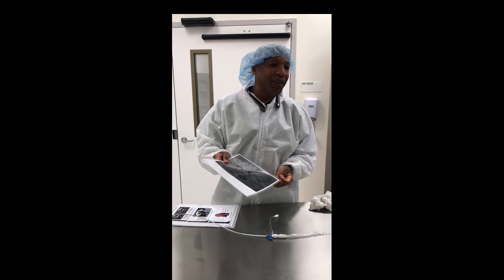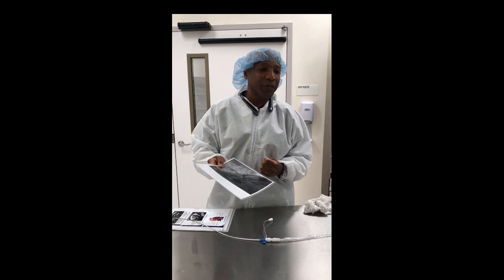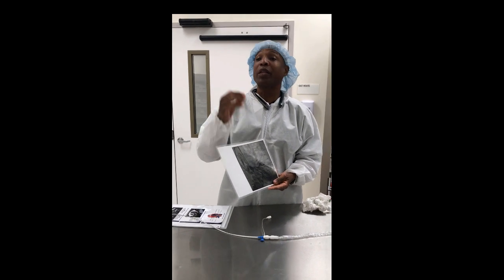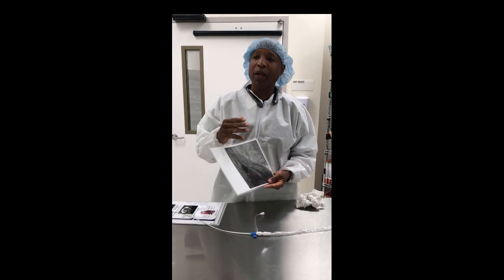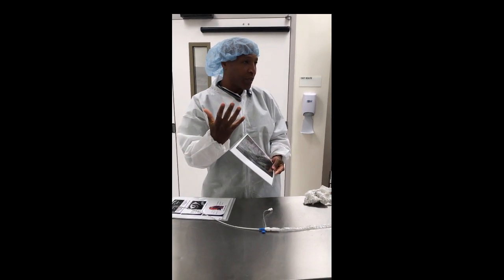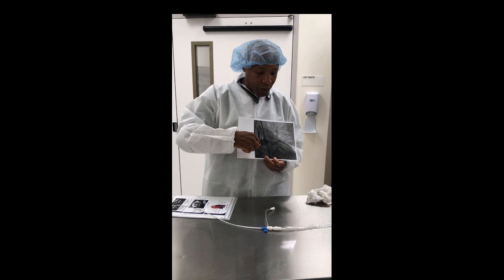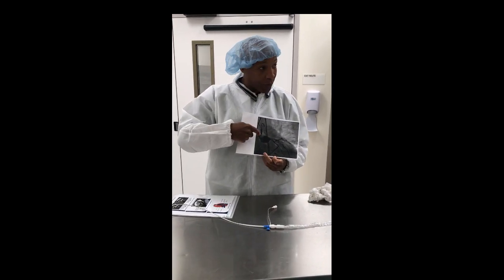Five to seven liters per minute is correct for a healthy heart. The Impella family of products: we have the Impella 2.5, which unloads up to two and a half liters per minute; the Impella CP, which can do up to four liters per minute; and the Impella 5.0, which can do up to five liters per minute. All of them work the same way once in the body. Once it sits across the aortic valve and the propeller spins, it pulls volume from inlet to outlet.